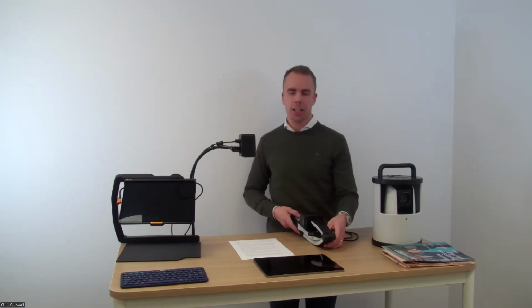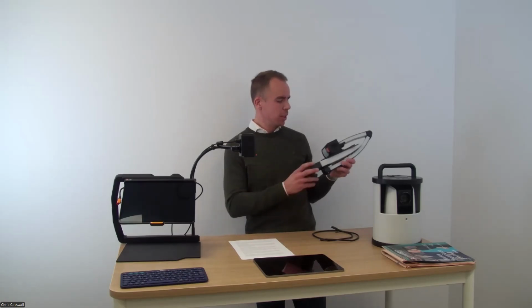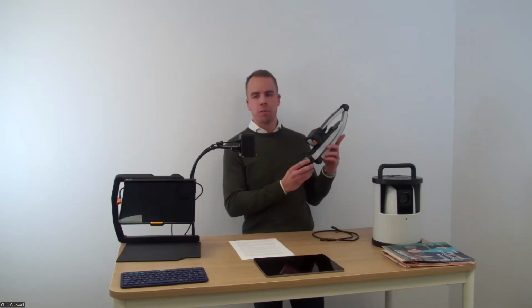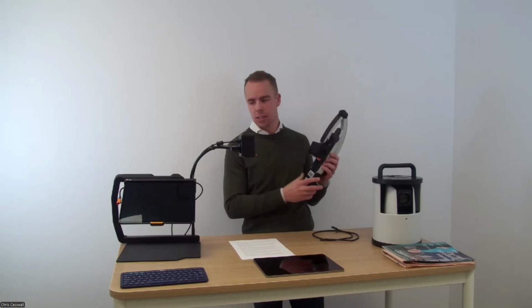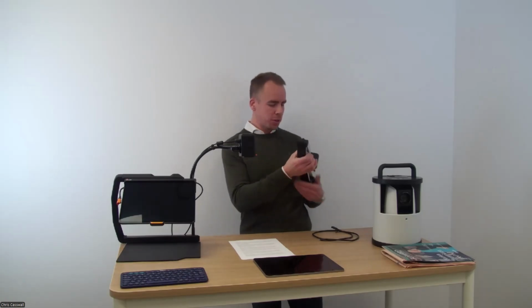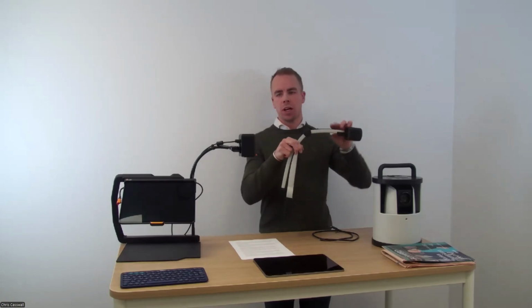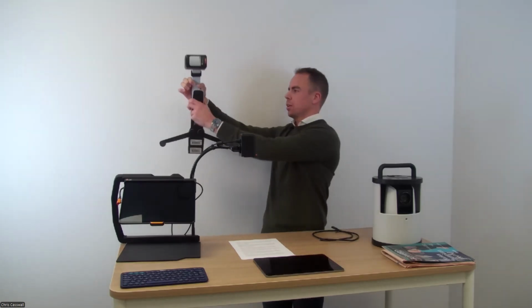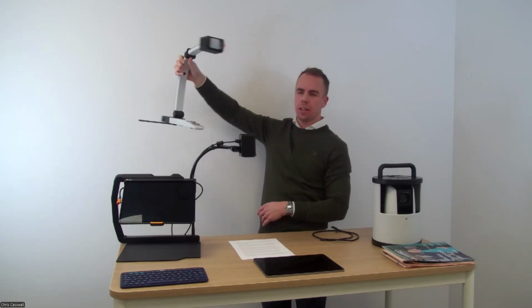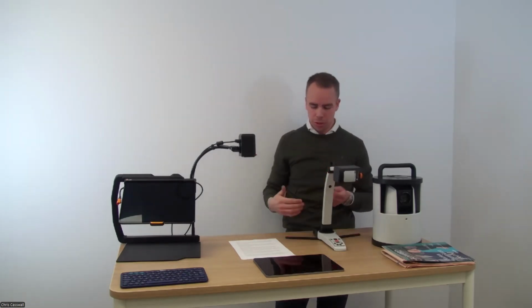The other product that has been mentioned is our more versatile product called the MagniLink S or the MLS. It's a just about 4-pound product that folds very nicely, comes in a carrying case like the iTab as well. In 3 steps. 1, pull out the legs. 2, 3. I'm opening the product and it's now ready to be placed on the table.